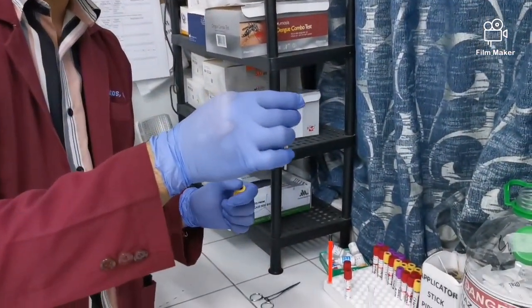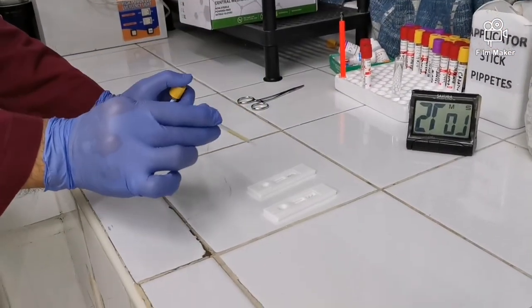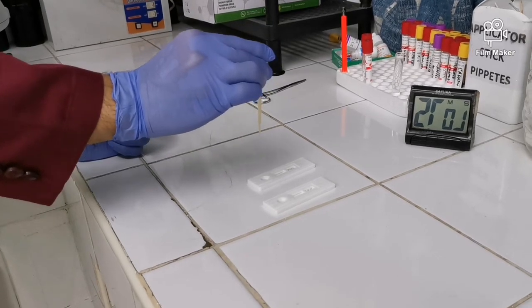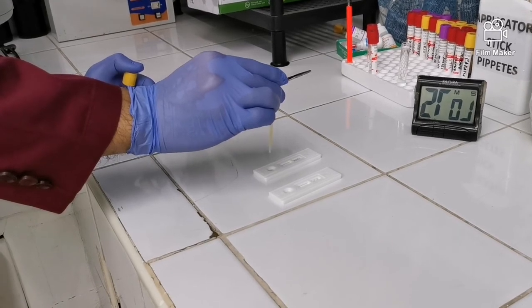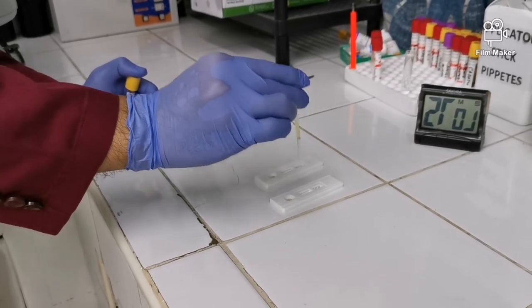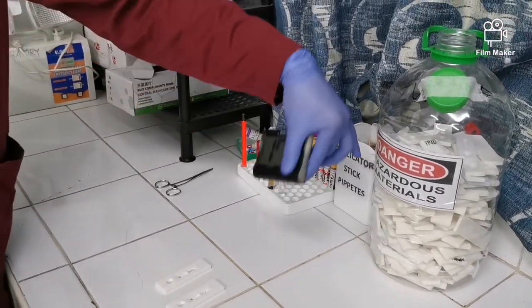And paano mag-drop? Paano ka mag-drop ng specimen? Dapat perpendicular, okay? Hindi nakaslant. Kasi iba yung volume na malalagay mo kapag nakaganito. Okay, the standard one drop is measured kapag ganito yung position, vertical. So 1, 2, 3 drops. So proper disposal, ayan, for applicator sticks and then set na natin yung timer.